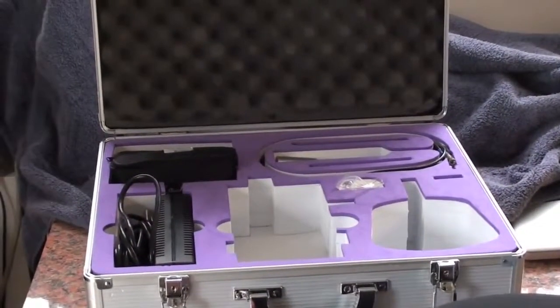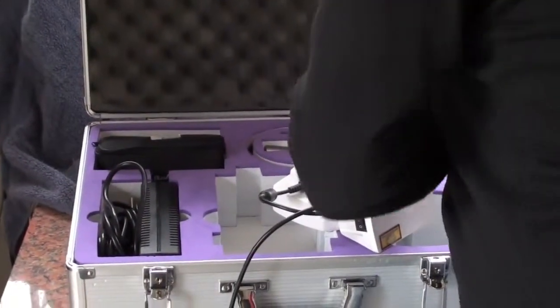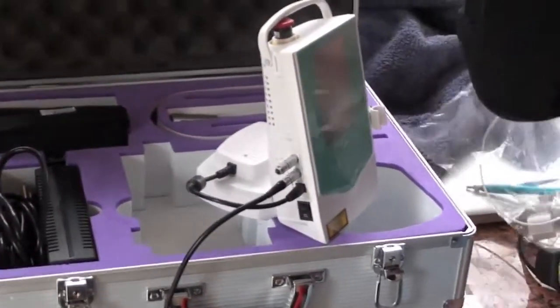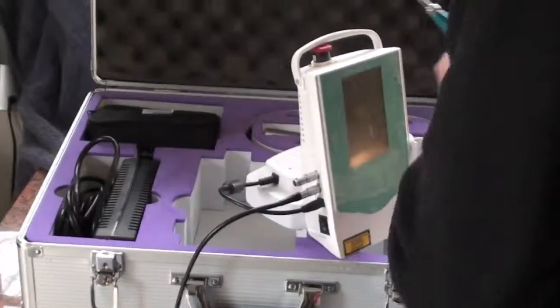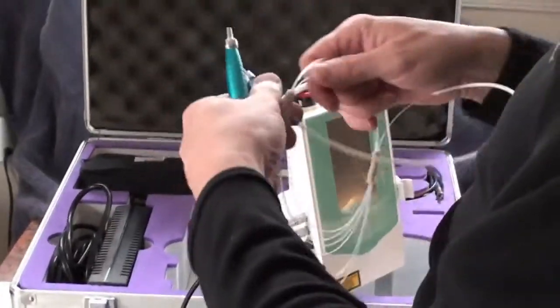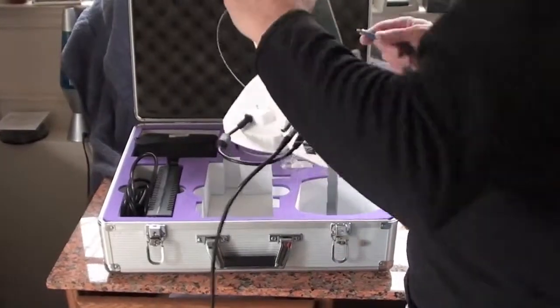Then we're also going to hook up the fiber. Again, there is a wheel that comes with this. It comes with every laser. However, I prefer the way it's set up like this. Much easier. But you can use the wheel. They both work well.